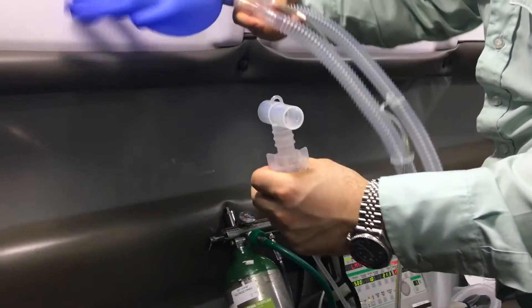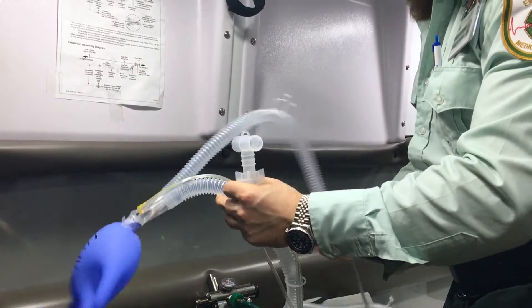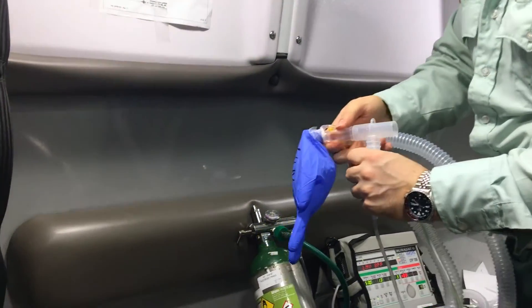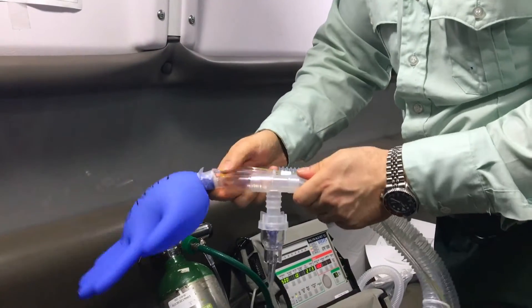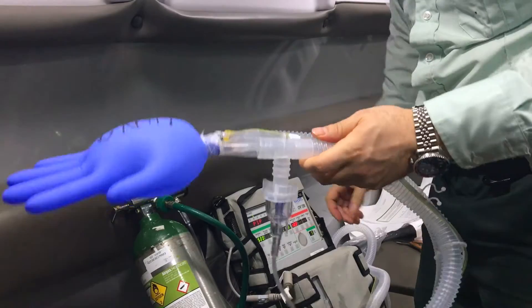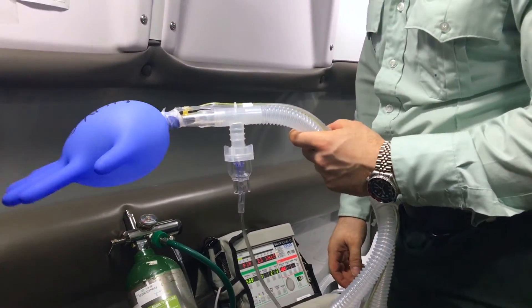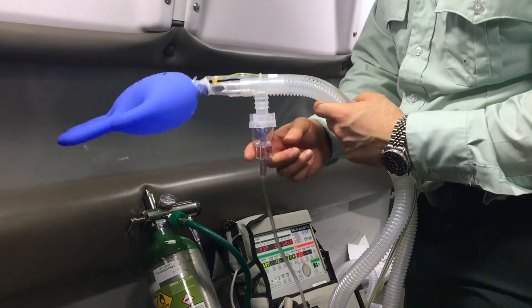The next thing you're going to do — you're going to look. This is the expiratory limb, this is the inspiratory limb. We're going to disassemble this from this part. Disassemble. The ventilator beeps because it senses a disconnect, but we know we disconnected ourselves. So this is what you have at this current time: the patient is being vented on the ventilator and the nebulizer is connected.